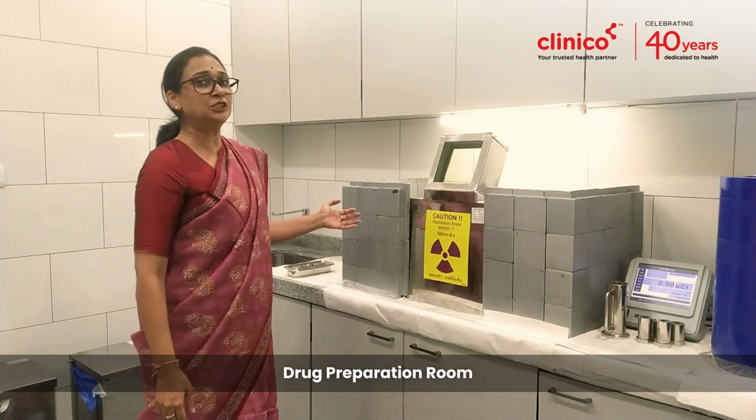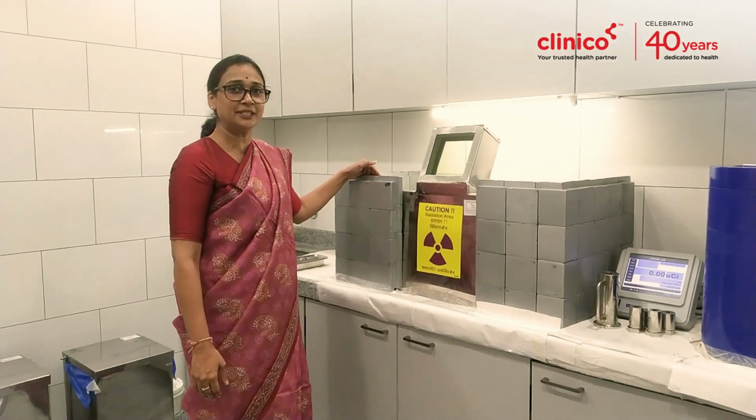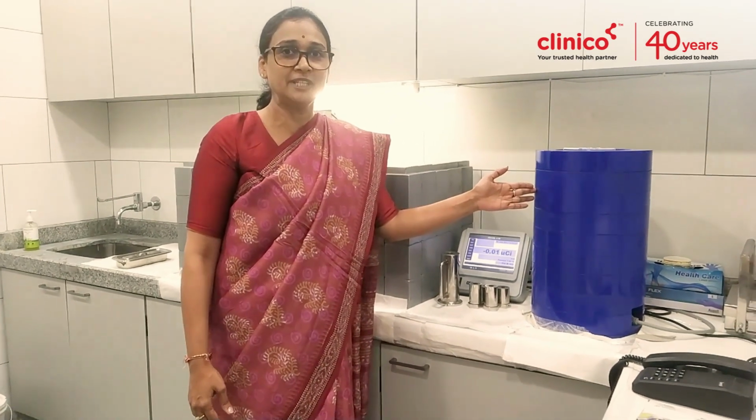This is the FDG elution area. We elute FDG behind these lead bricks and we measure it in the dose calibrator as per the patient's body weight, following which we give that injection to the patient.